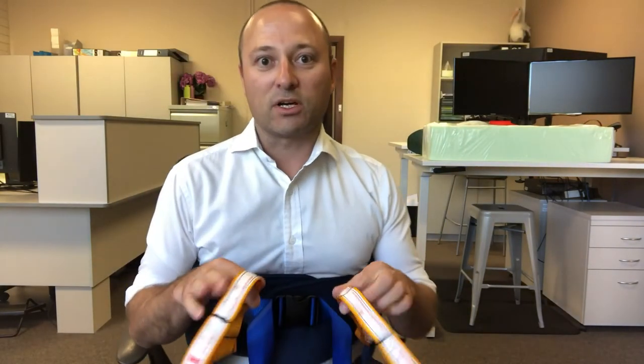There are three different sizes. If you need a custom size, let us know as always, and if you have any queries please get in contact.